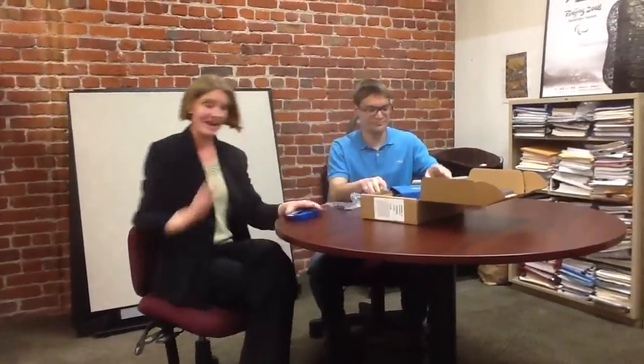Which is cute and helpful. What I have been really happy and having fun with is using this with my iPhone, turning off the speech completely, and just operating the iPhone exclusively by using Braille. So no earbud? No earbud, nothing. Wow. In fact, I'm going to show you how I have my office set up so that I can sit here when we're having a meeting, take notes, without having to have an earphone in or having sound going at all — I'm able to type notes right into the notes application on iPhone.